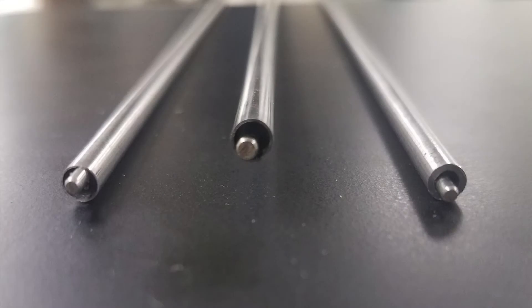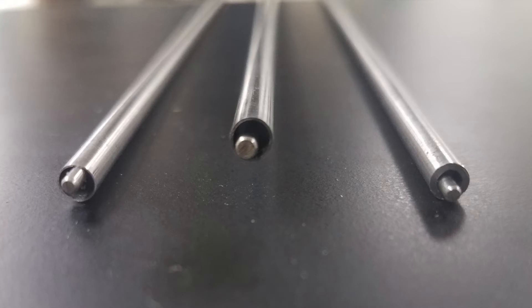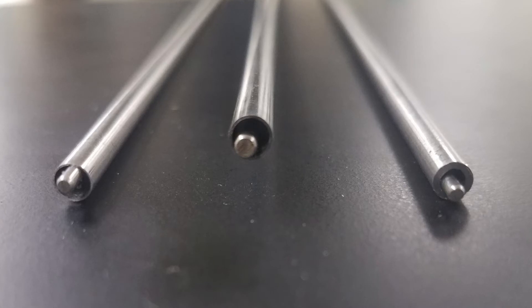These are the three different types of AI guns you can buy. On the left we have a universal gun, in the center we have a half cc gun, and on the right we have a quarter cc gun. You'll notice that the outside diameter of the barrels are all the same — just the one on the quarter cc gun is a little bit thicker to accommodate the smaller straw. The plunger is the same size on the universal gun as it is on the quarter cc gun, while the plunger on the half cc gun in the center is thicker than the other two.